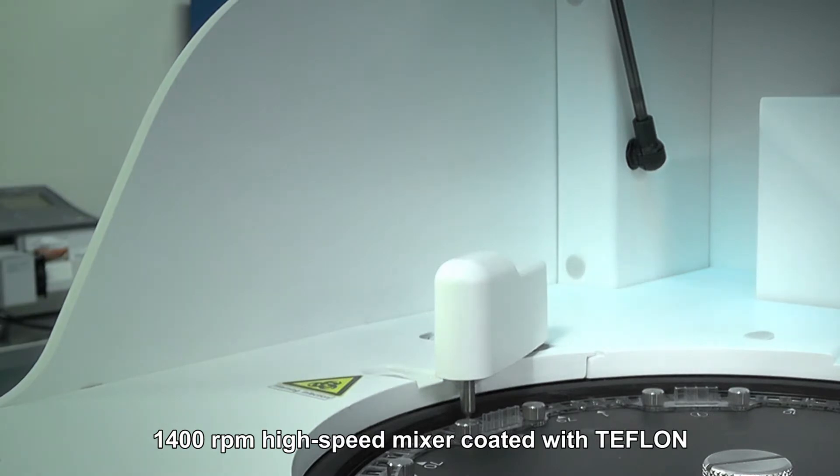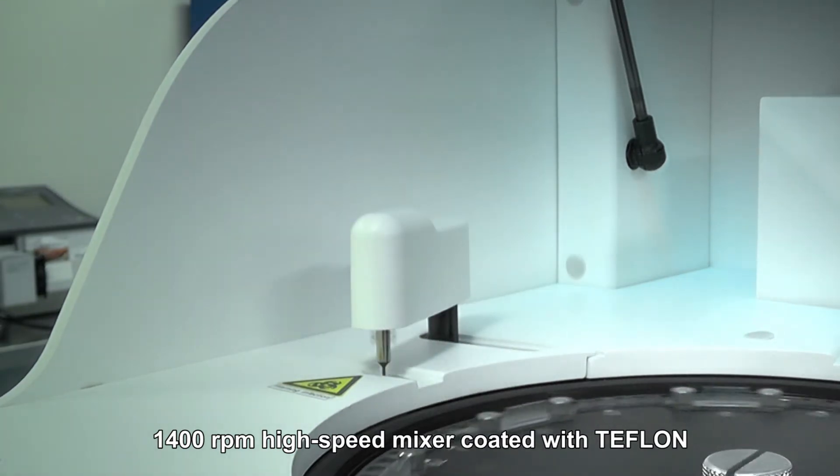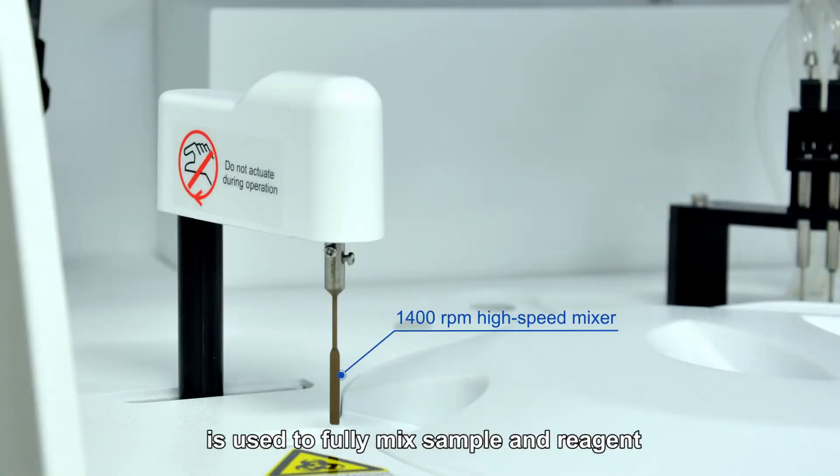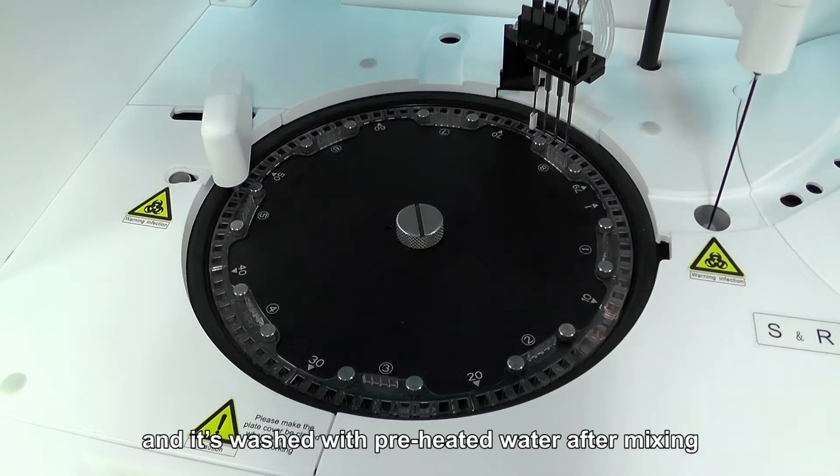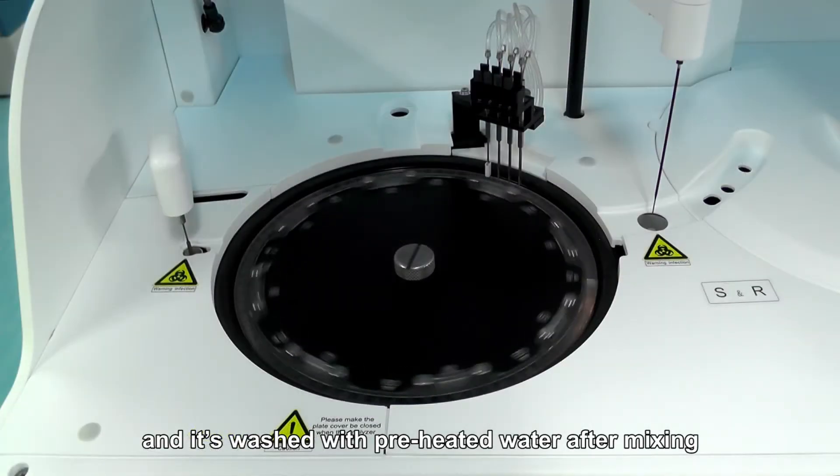1,400 rounds per minute high-speed mixer coated with Teflon is used to fully mix sample and reagent and is washed with preheated water before and after mixing.